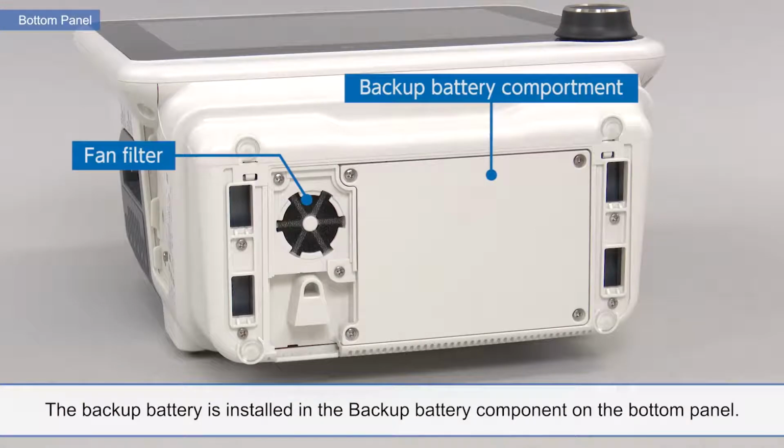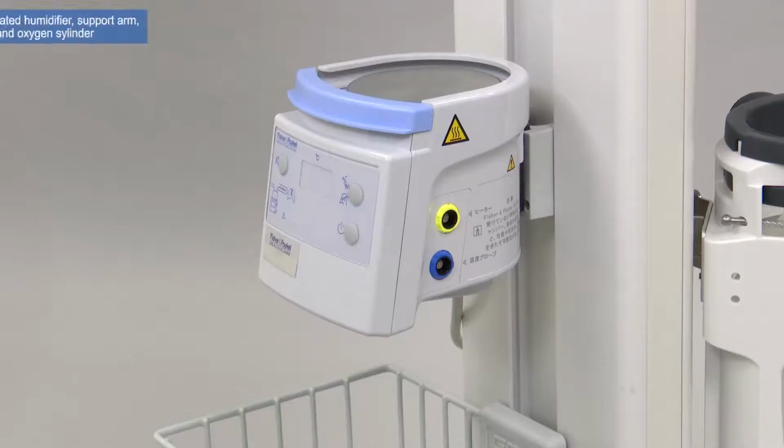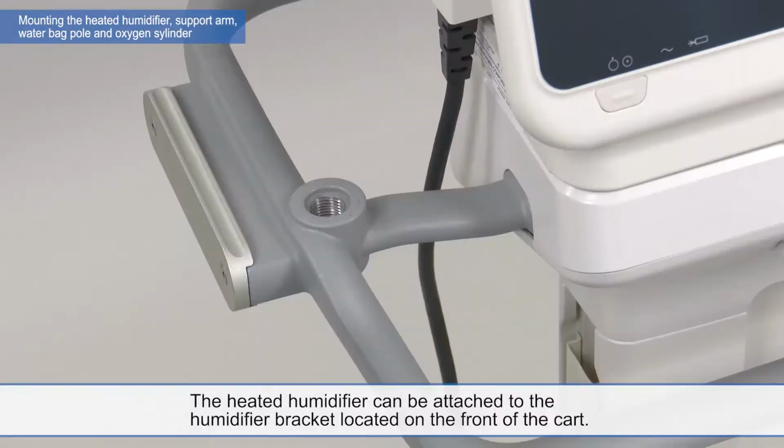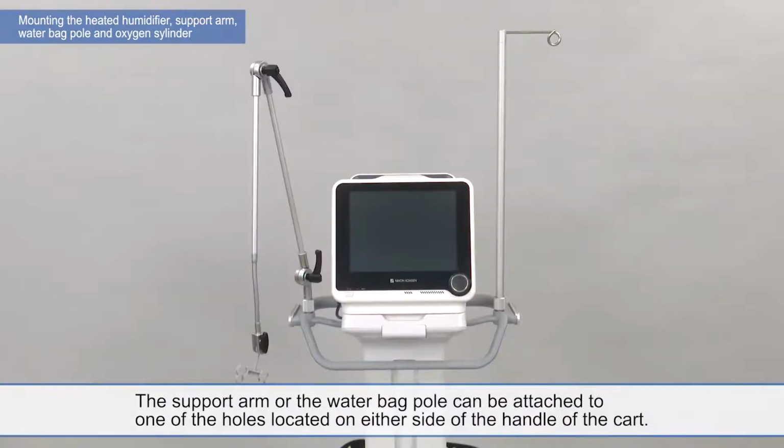The backup battery is installed in the backup battery component on the bottom panel. A cooling fan is located on the bottom panel, and a fan filter is installed in front of the fan. The heated humidifier can be attached to the humidifier bracket located on the front of the cart. The support arm or the water bag pole can be attached to one of the holes located on either side of the handle of the cart.